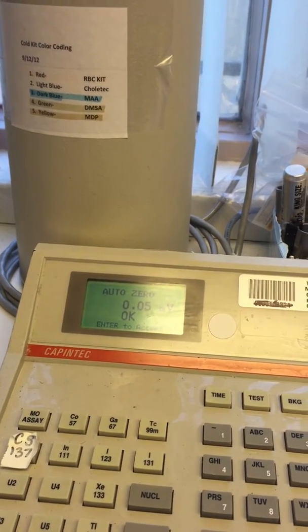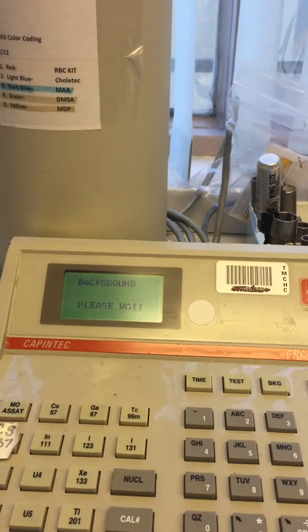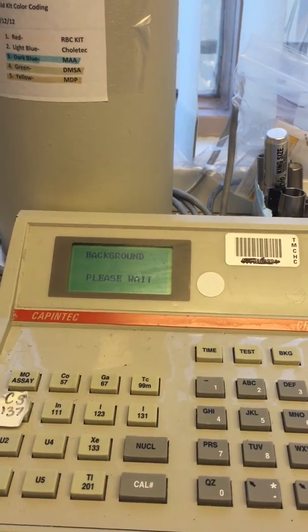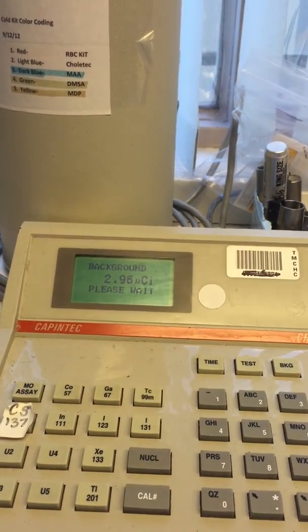So we're going to push enter, and we're going to get a background of the radioactivity in the room, or in the chamber, in the background.